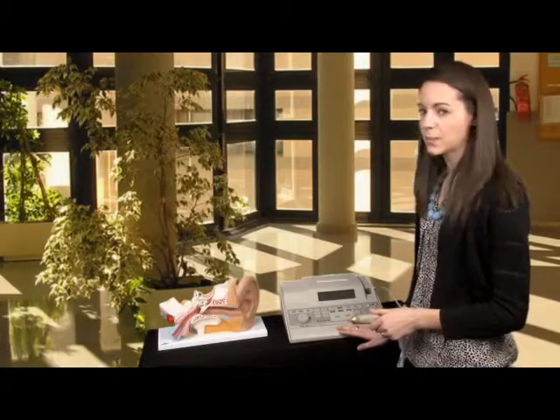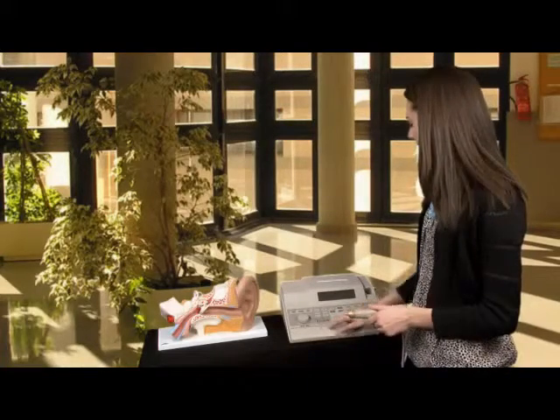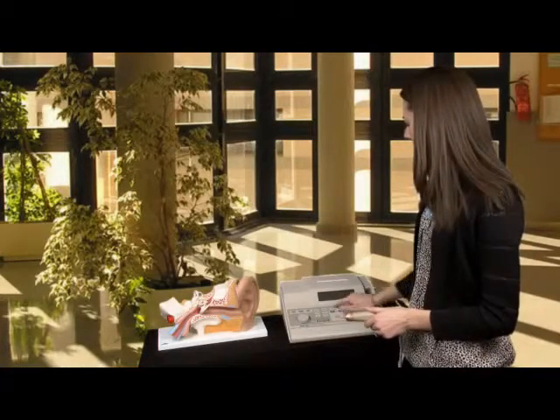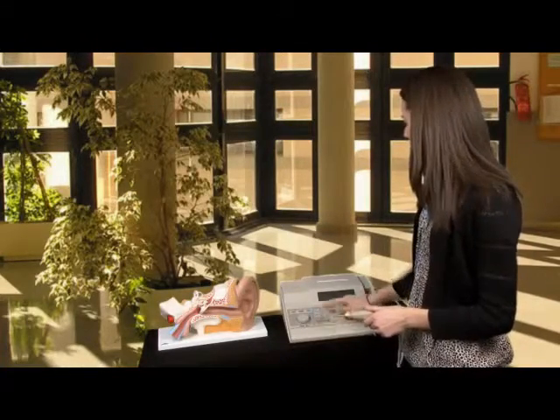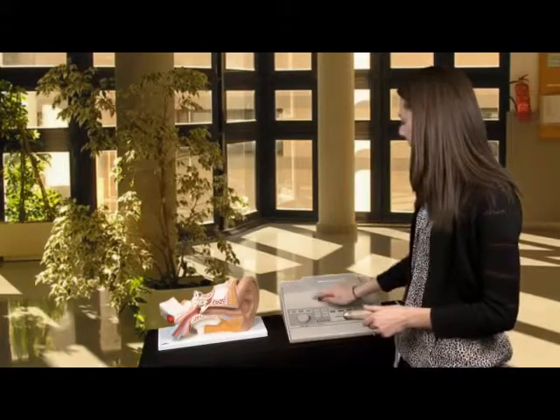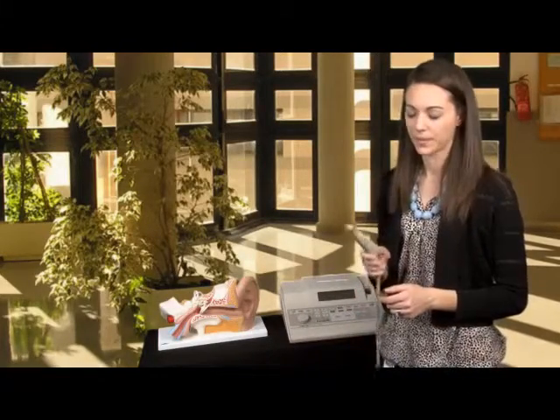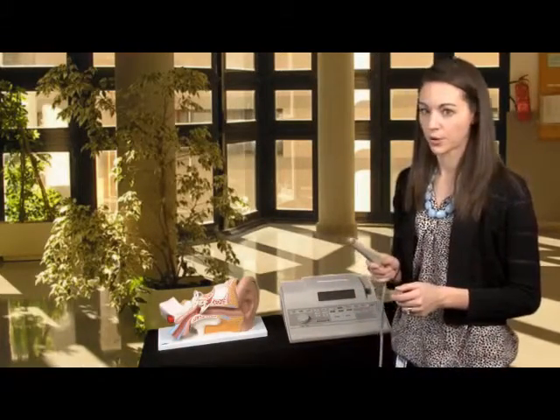It has several different parts. There are some buttons right here, a display screen right here, and a probe. Right here is the probe.